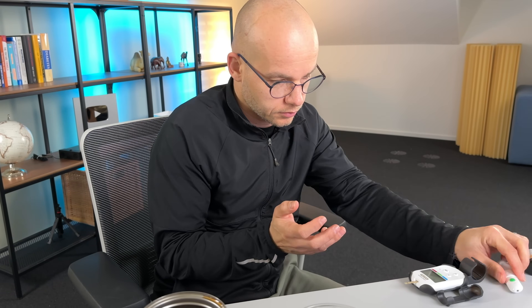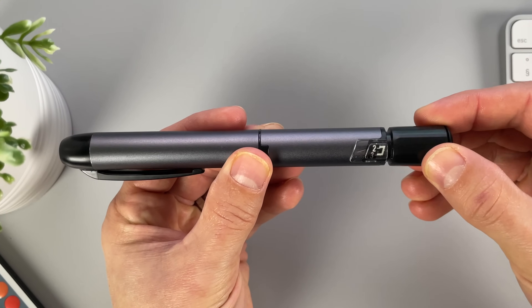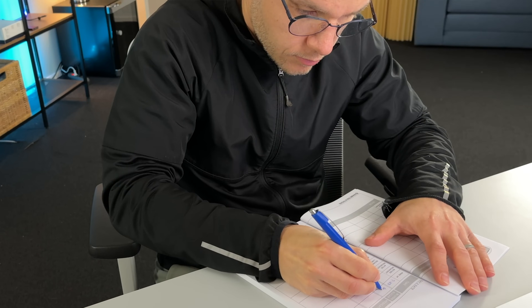This old phone makes phone calls, but that's it. A smartphone can do a ton of other things. Now take this basic pen — it injects insulin. But managing diabetes is about so much more than that. It's about measuring my glucose, calculating how much insulin to inject, tracking what I eat and how much insulin I take. The smart MDI system can do all these things for me, and in fact, it can do a lot more than that.